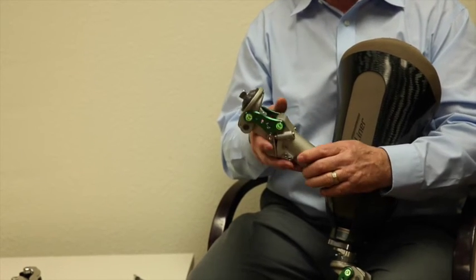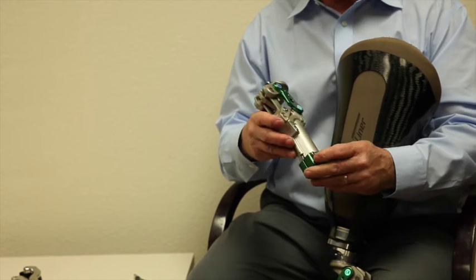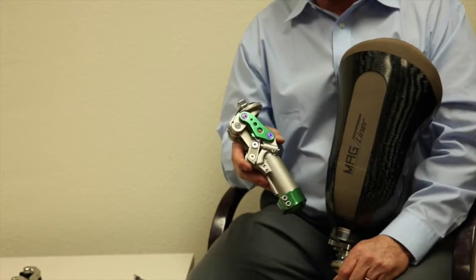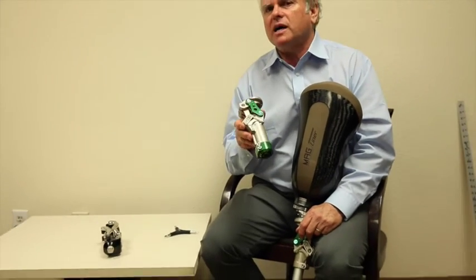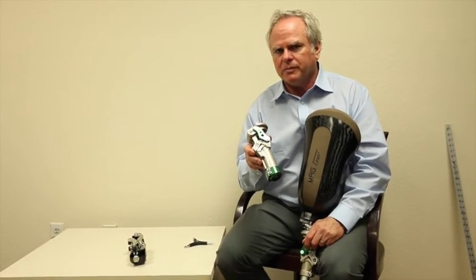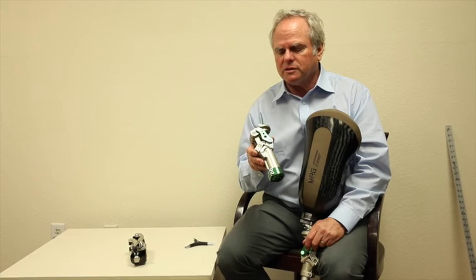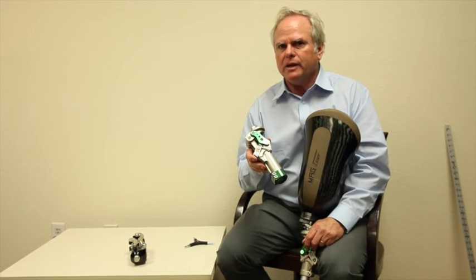This knee has really proved itself out really well in some third world countries. It's very durable, it's very long lasting. But like any mechanical device it needs to be taken care of. Just because I say it's durable doesn't mean that it shouldn't be kept clean and it should never be used in salt water.